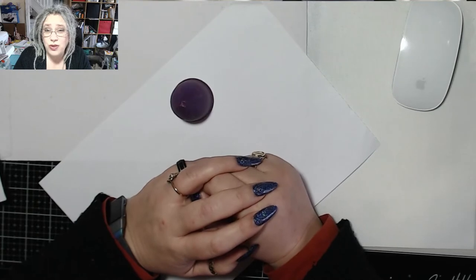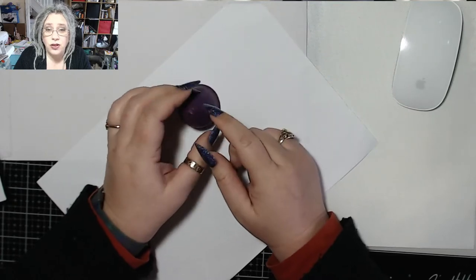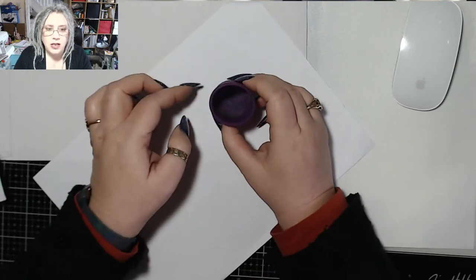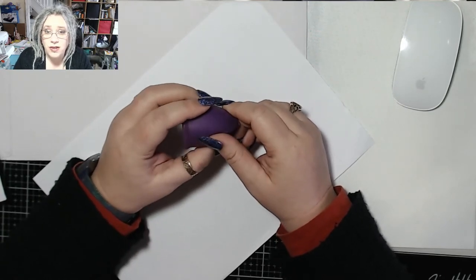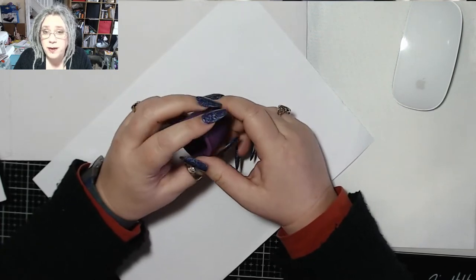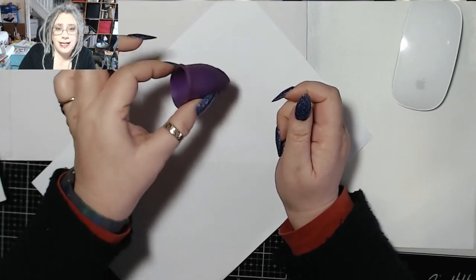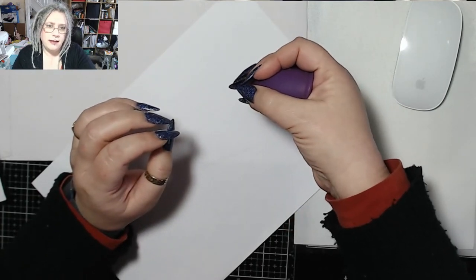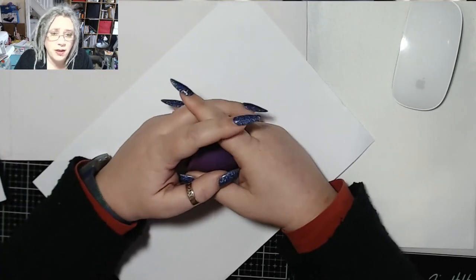What do I wash it in? I wash it with hot water from my faucet and then every few months I'll boil it. This one came with a container that you can put it in — you fill the cup and the container up with water and just stick it in the microwave for a few minutes until the water boils, which is brilliant. The other thing you can do is use a saucepan, but if you boil your cup make sure it's not sitting in contact with your pan. A lot of people use an egg whisk because the whisk sits around it and they can balance it in the water. I just use the container that my cup came in.